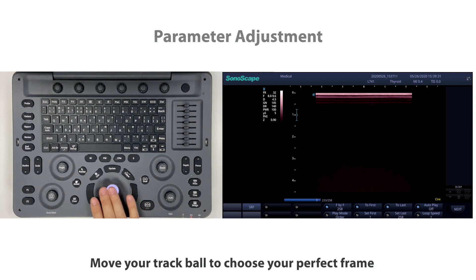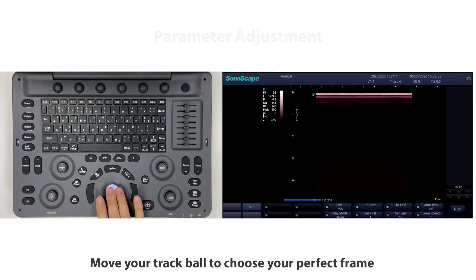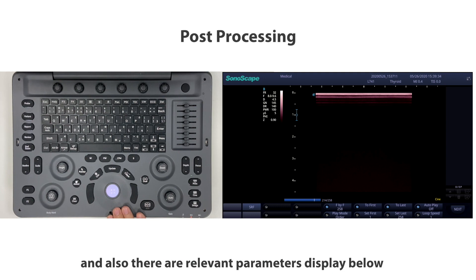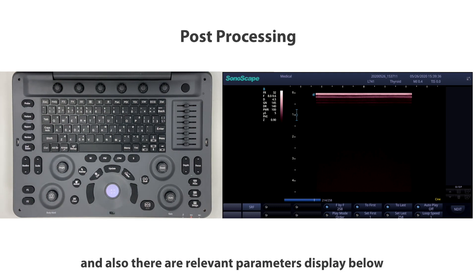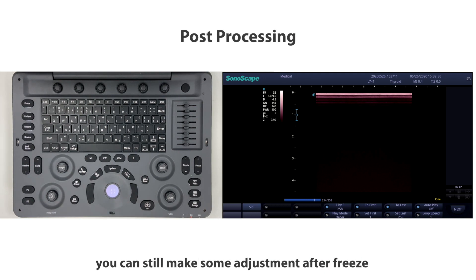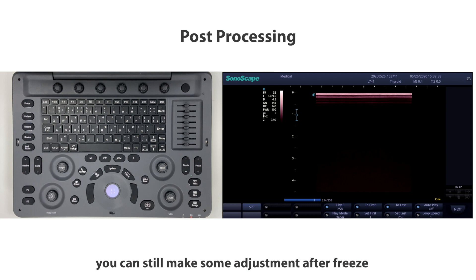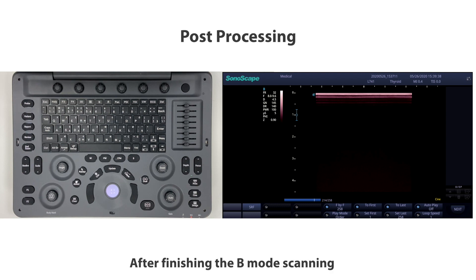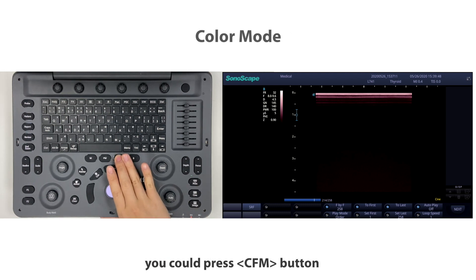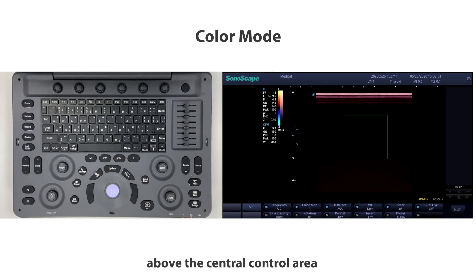After you get a standard image with good parameters to fit your need, press Freeze to capture the frame. Move the trackball to choose your perfect frame. Relevant parameter displays are shown below and you can still make adjustments after freeze.